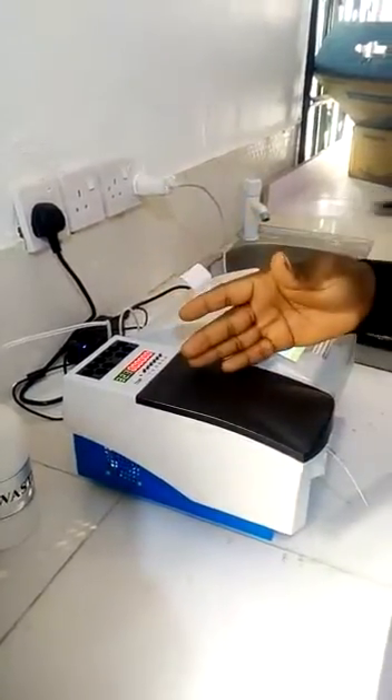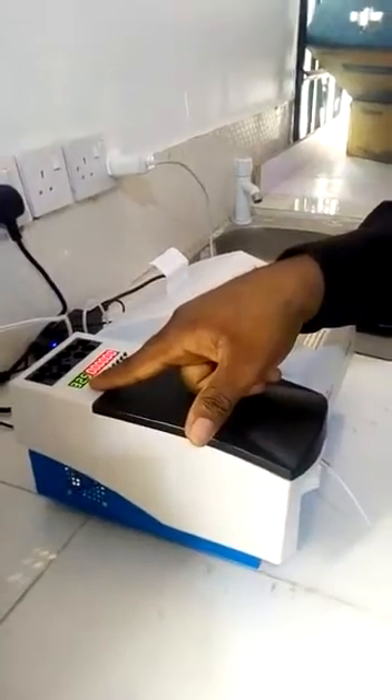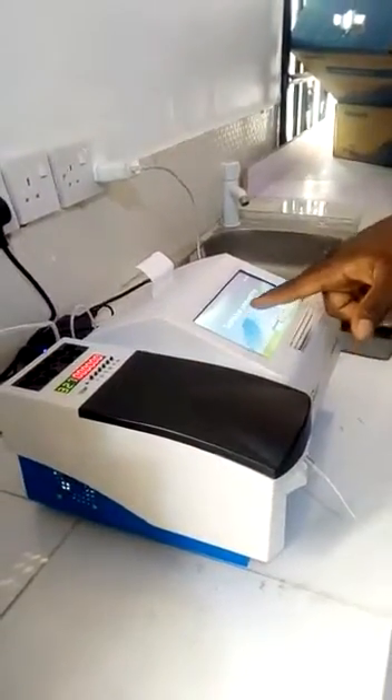For each test, if you set any temperature and you change that test, it will start going down. So you watch it — it will warm up. You see the system is pretty intimidating.